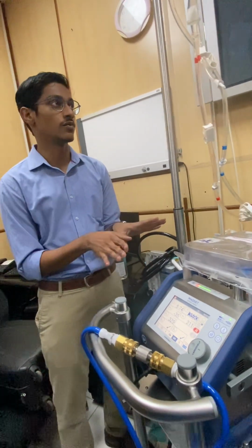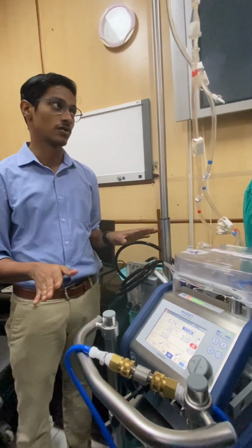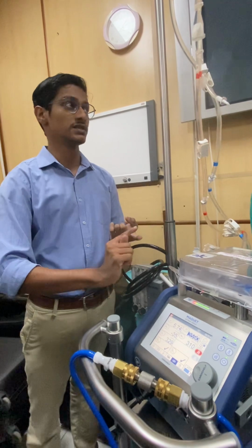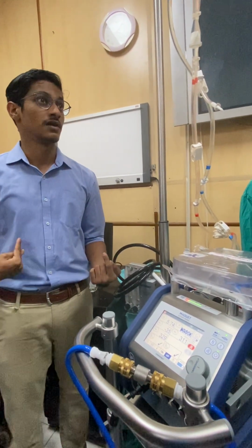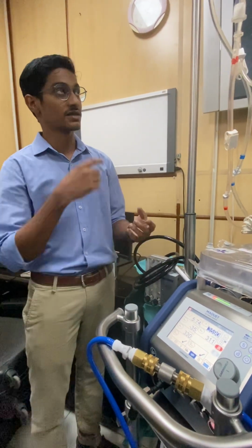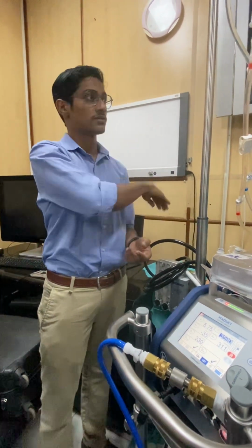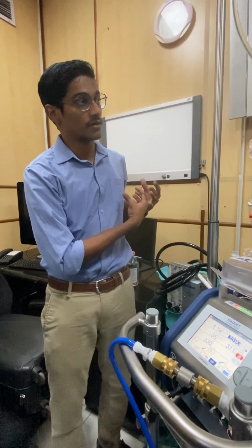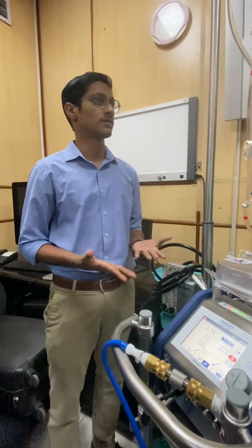Let's take a VA ECMO. We have stopped the pump. One thing, as sir said, the support is gone. That is one thing. There is another bigger disadvantage: the arterial system will always have a higher pressure, and the venous system will have a lower one. And this is a centrifugal pump, just like a fan. If you rotate it to this side, it will rotate this way. If you turn it this side, it will turn this side. So if the machine is not producing any RPMs, the blood will go from the arterial system to the venous system, and there is a chance that the patient can collapse.